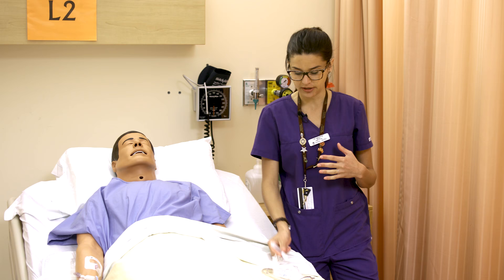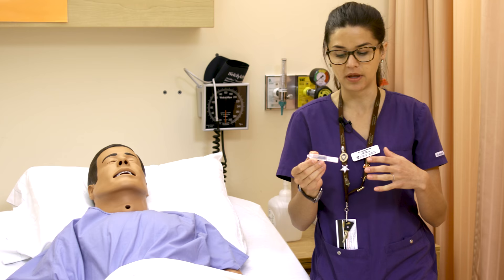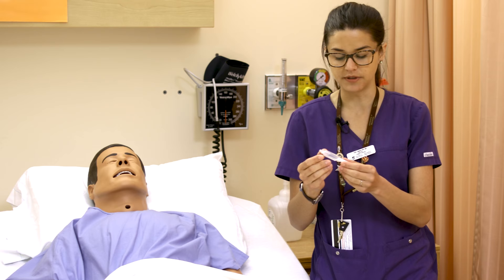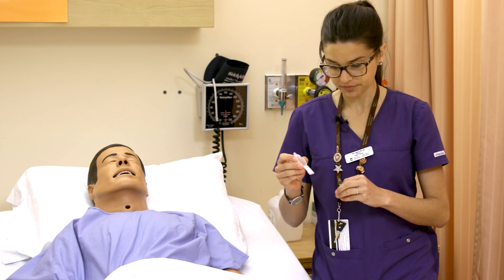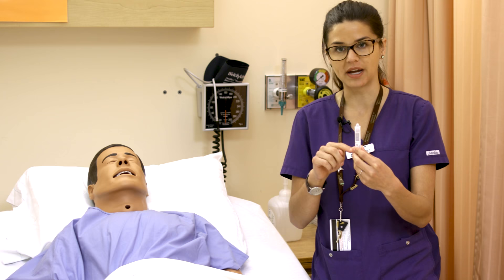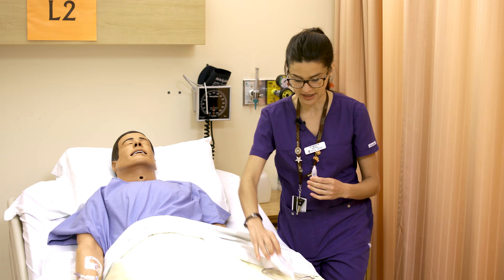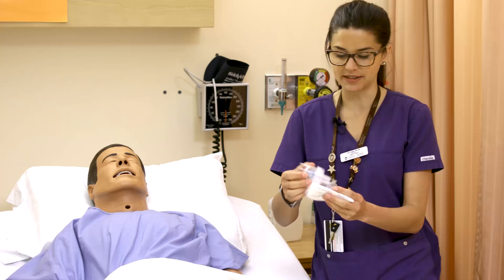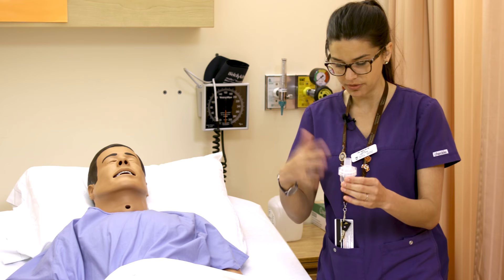You would start in your med room because this is a medication supplied through pharmacy. This is what the nebulizer looks like. You want to make sure you have an order for it and use your MAR and medication administration principles to prepare it. This one is a Combivent — a combination of Atrovent and Ventolin in one nebule. Note that the nebule is the medication vial, while the nebulizer is the device that aerosolizes it.